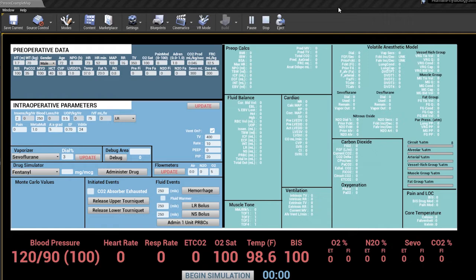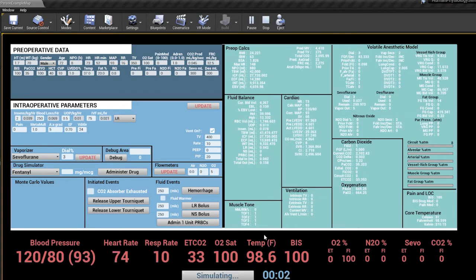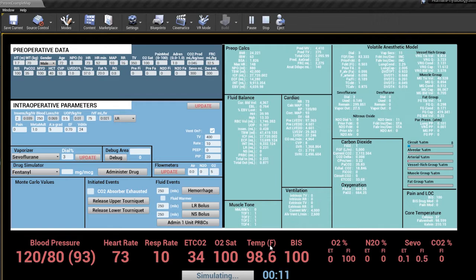This screen we're looking at right now is a workspace I created in Unreal Engine to help me test the effects of different physiological parameters and pharmacologic interventions on a patient, and how all of that affects what becomes their vital signs on the monitor. I'm going to click Start Simulation, and we'll start to see some changes happening. In the black area at the bottom with all the red numbers, we have blood pressure, heart rate, respiratory rate, end tidal CO2, and so on — these are the actual values that would appear on the patient's anesthesia monitor.